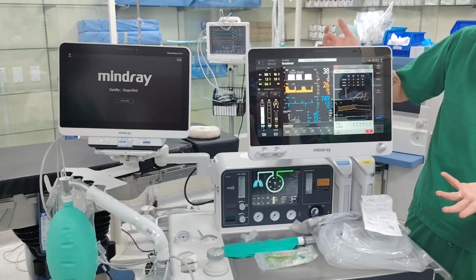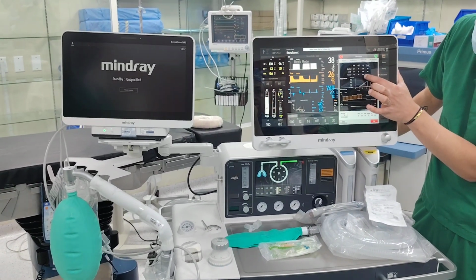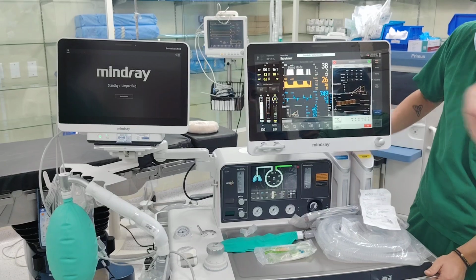Okay, and in case the patient develops hypotension, you can press stop in the middle. Otherwise, you will see here, look, these are the differences. Okay? I know it's a lot.